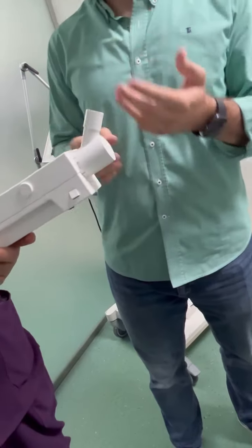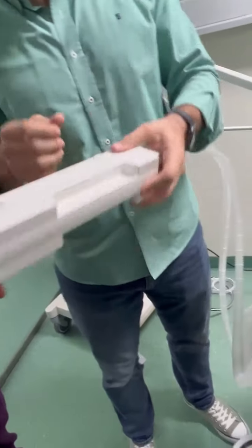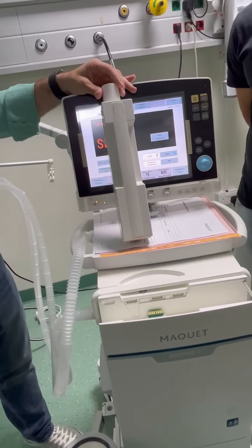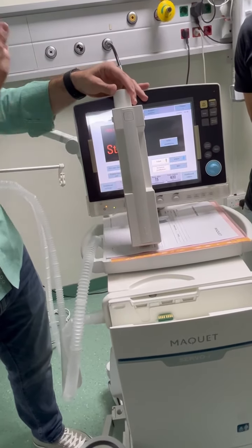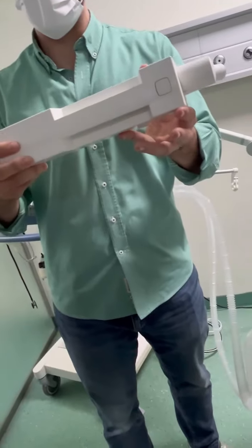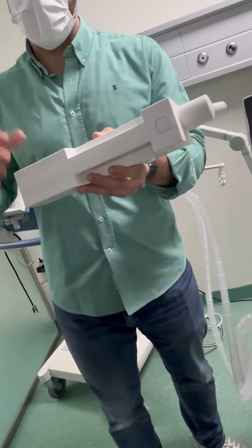Also, you have 3 ways of drying. First way, you tilt it, you put it like this, at 45 degrees for 24 hours. So all the liquid inside will drip down in room temperature. If we don't have time, we can send it to CSSD for a drying cabinet. They will put it inside the drying cabinet, around 20 minutes. It depends on the drying cabinet cycle.